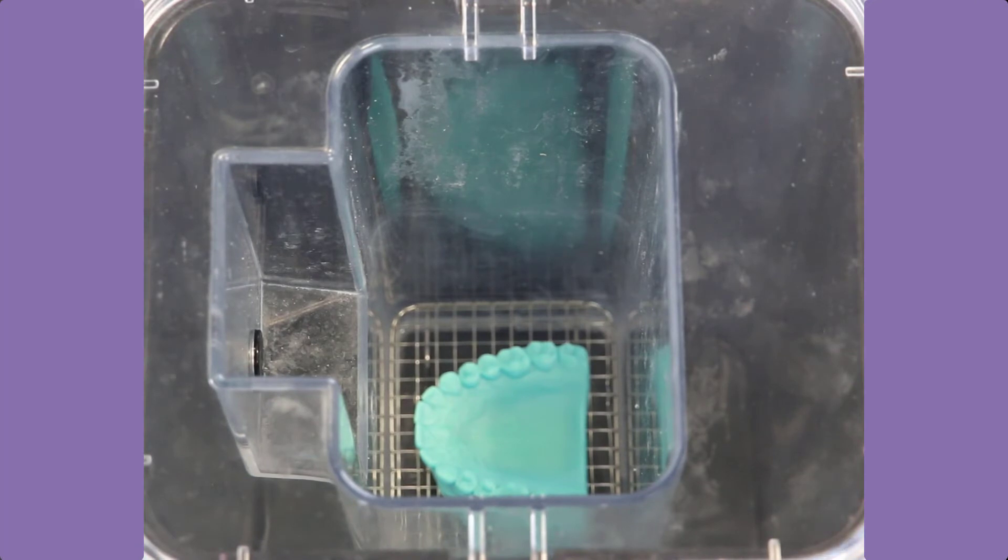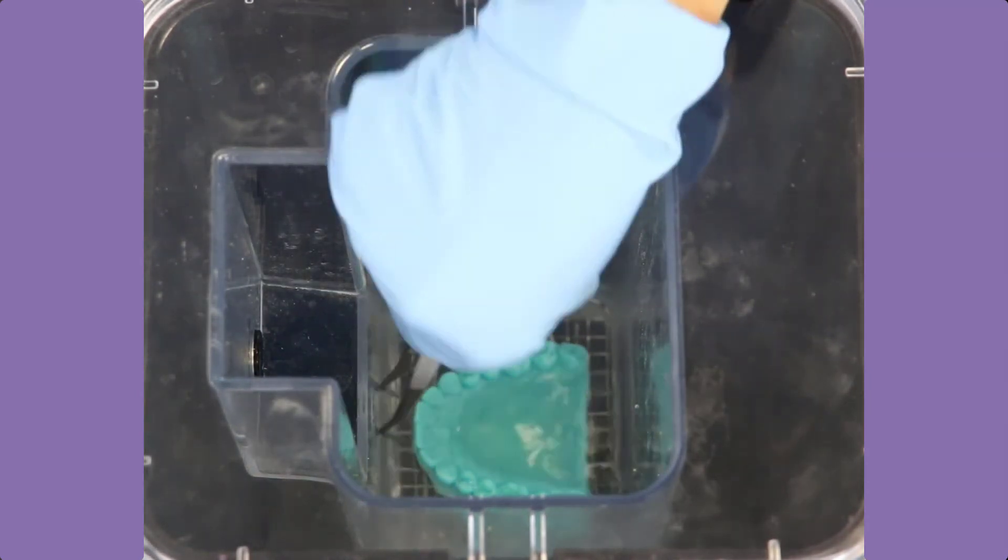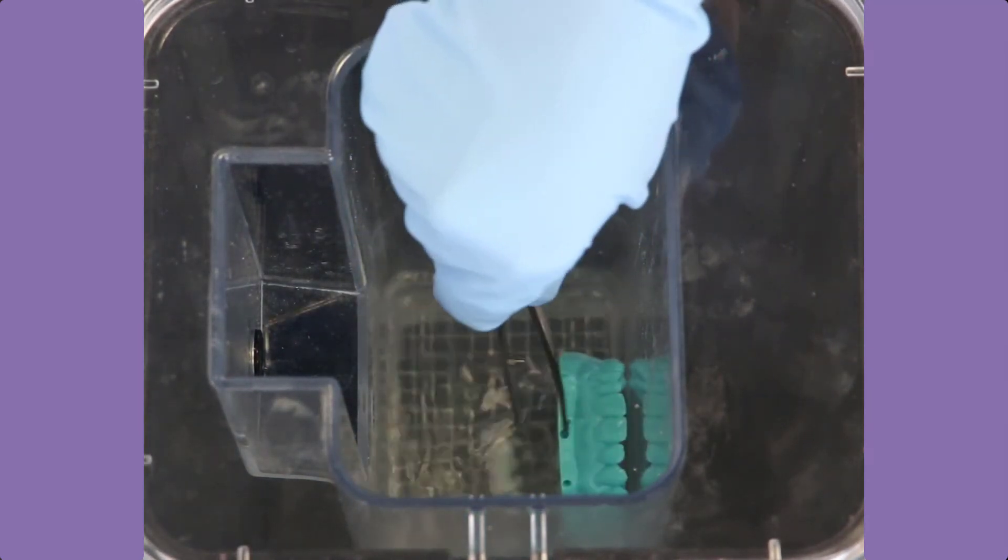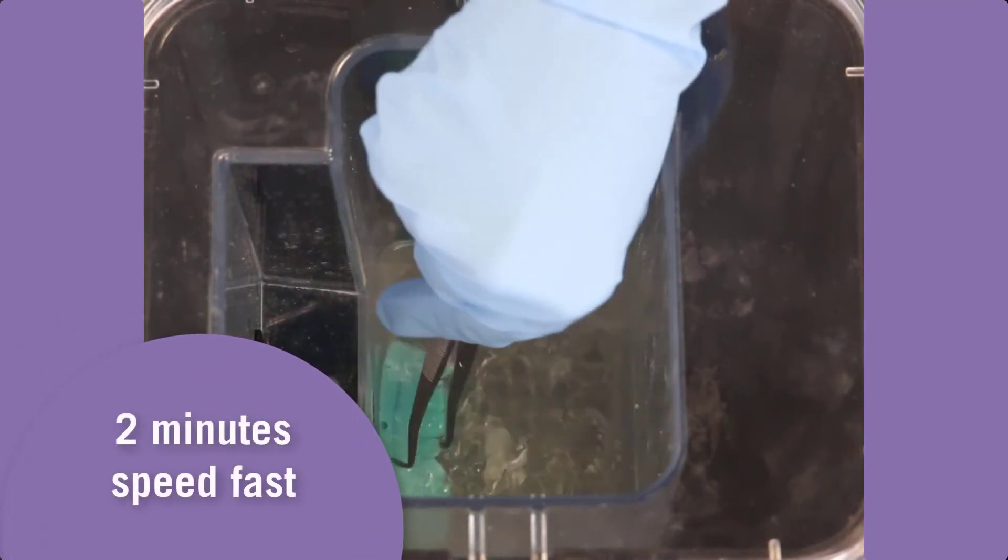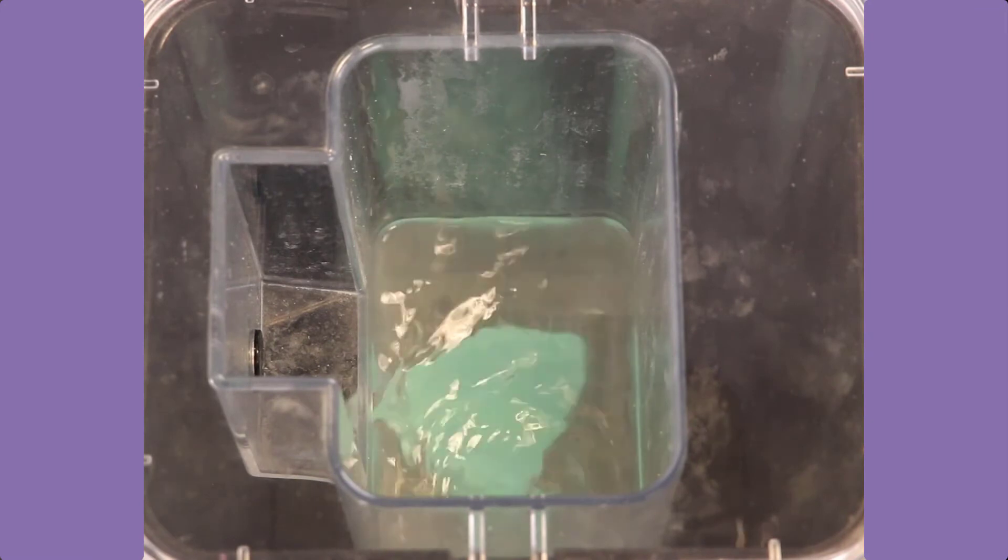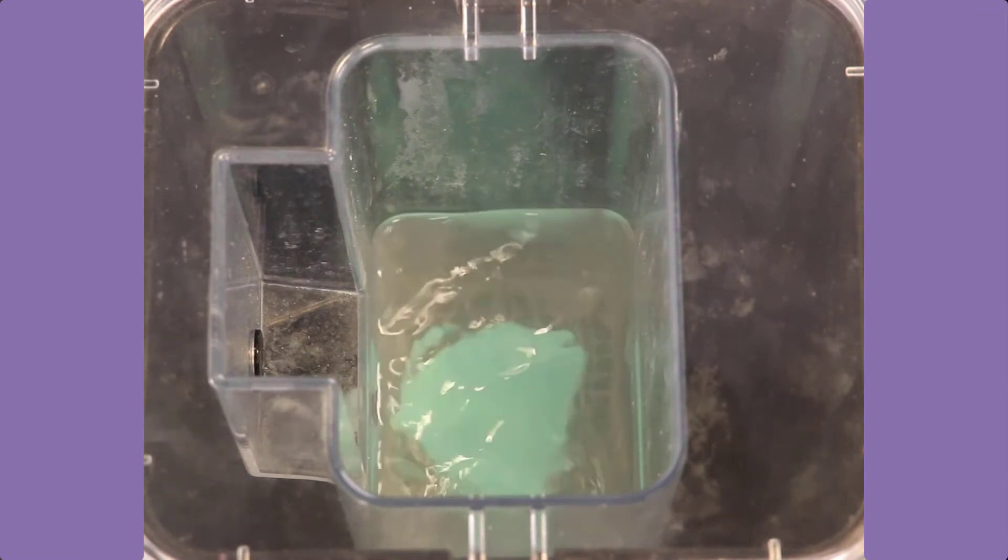To clean all areas of the model perfectly, turn them while pumping the isopropanol into the inner tank. The second cleaning time is two minutes. After the second cleaning step, the model is blown dry with compressed air.